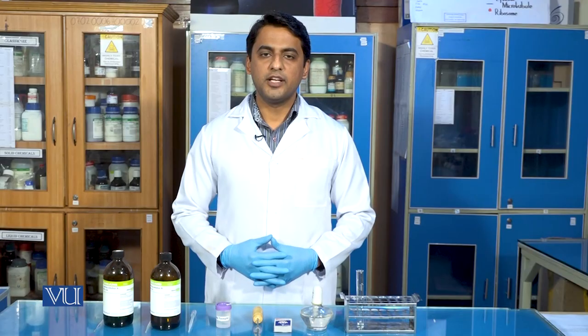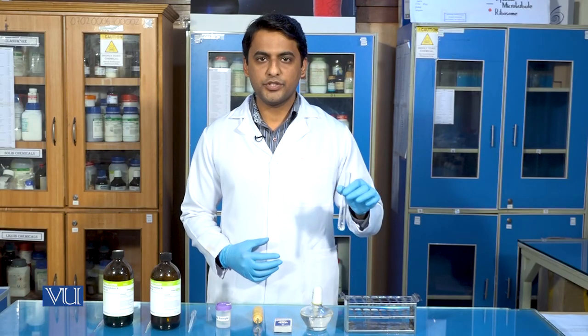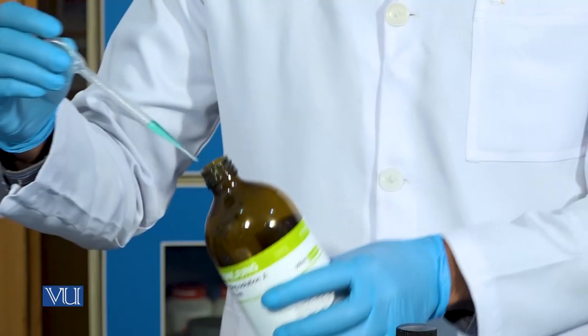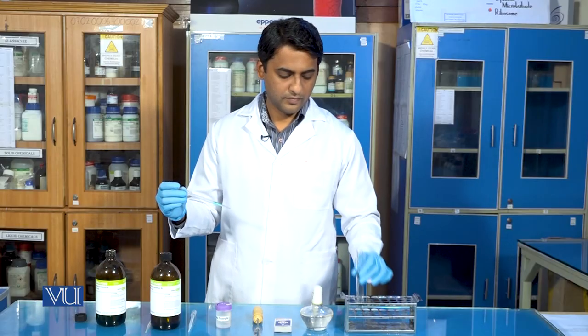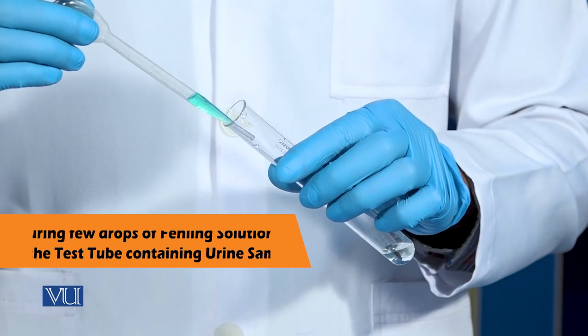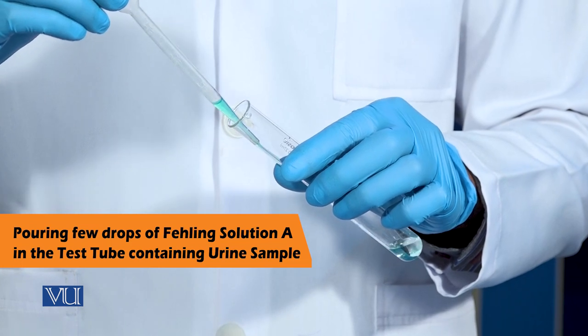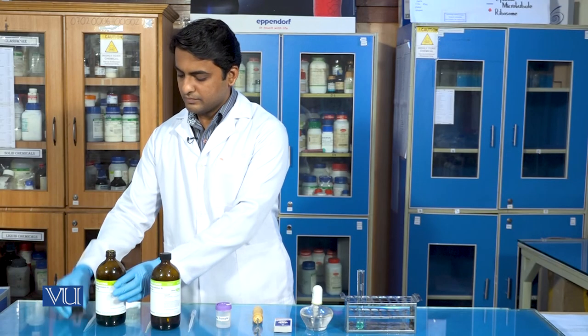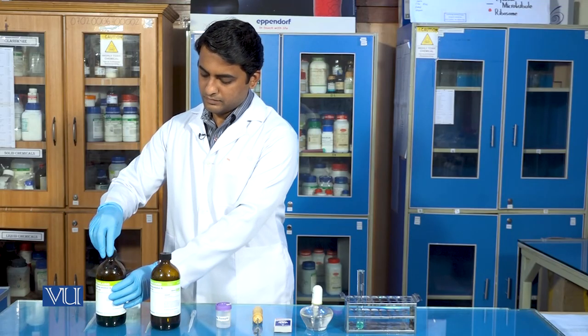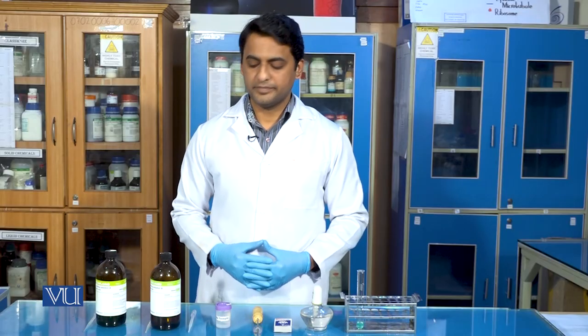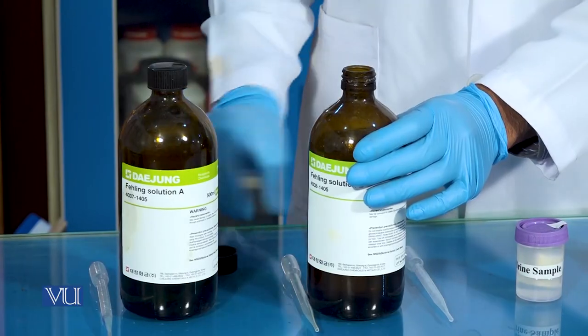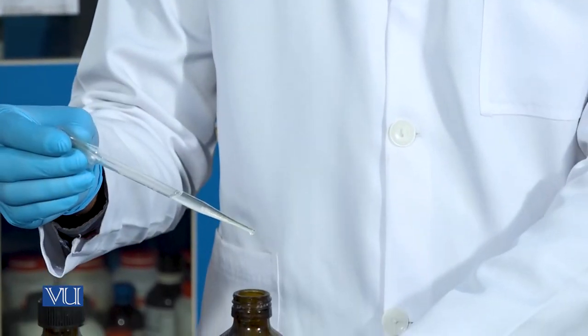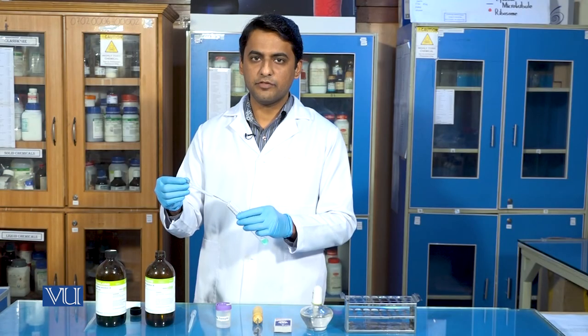Now we will add fehling solution A with the help of dropper in our test tube. Now we will add fehling solution B carefully in test tube.